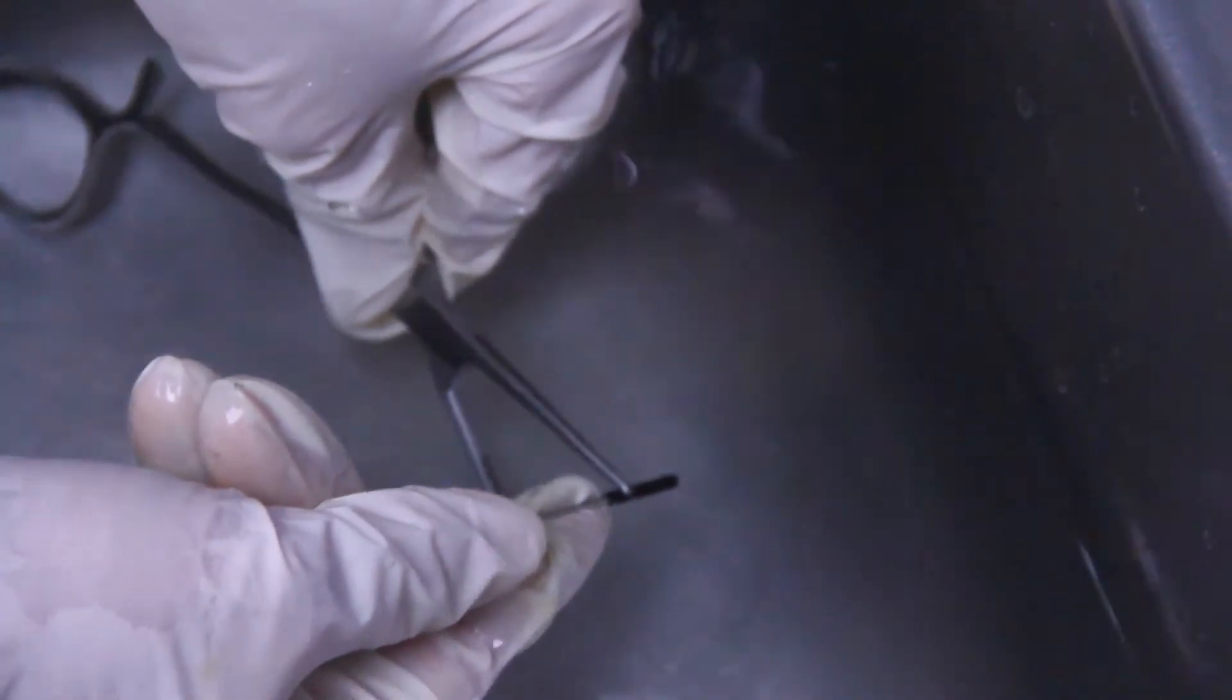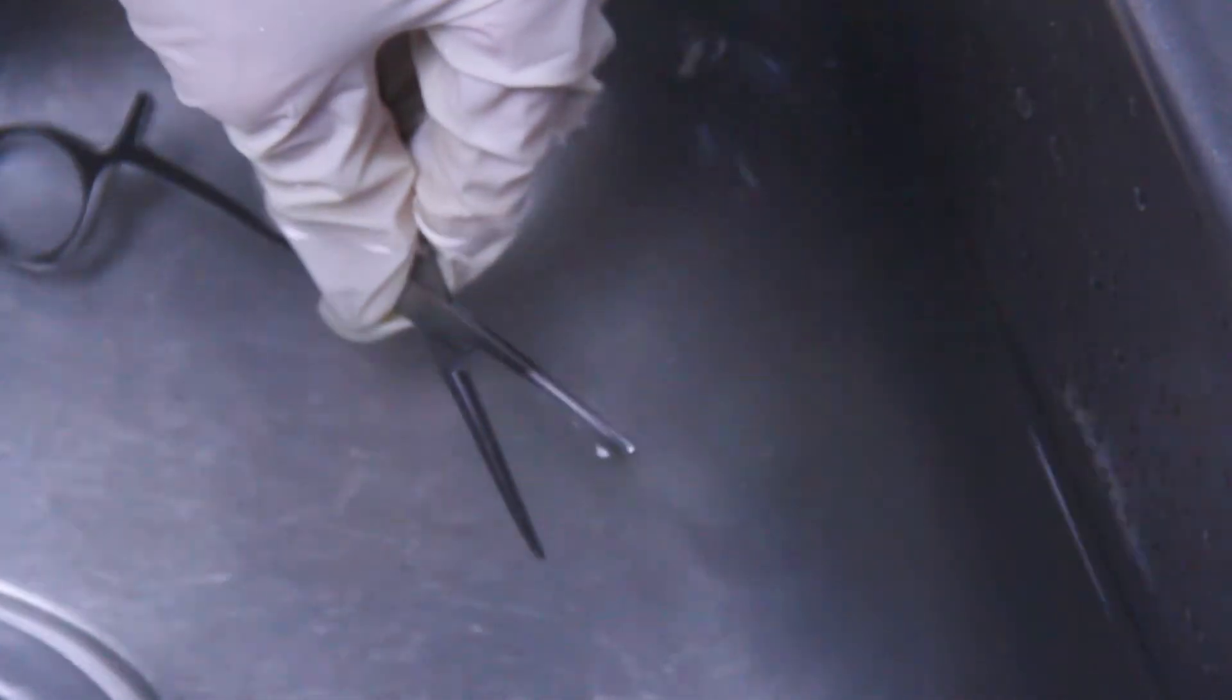Brush delicate instruments carefully, and handle them separately from general instruments. Hold the instruments below the surface of the water when you scrub them to avoid splattering contaminants. Be sure to brush out all crevices, teeth, and grooves.